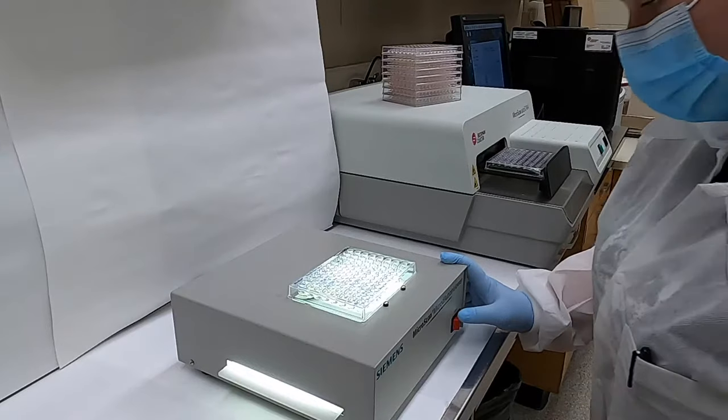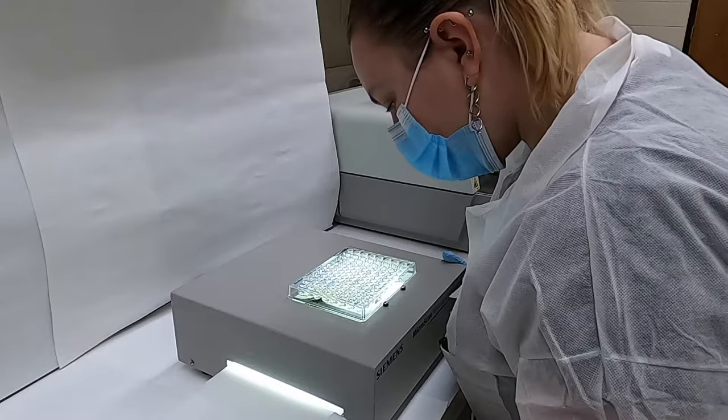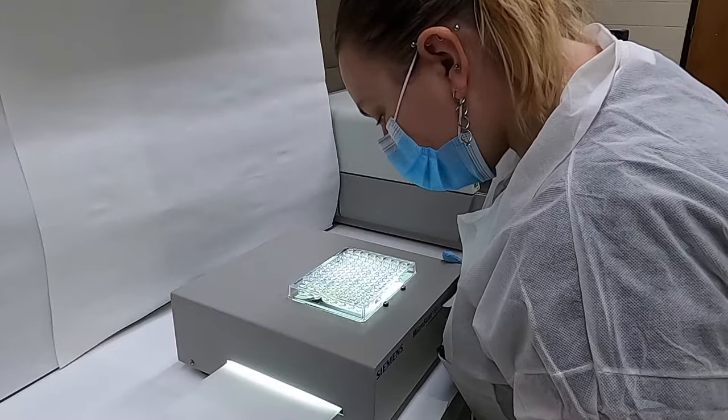This can be done either manually using a light box, as you see here, where we inspect each well for bacterial growth as indicated by the presence of a pellet.